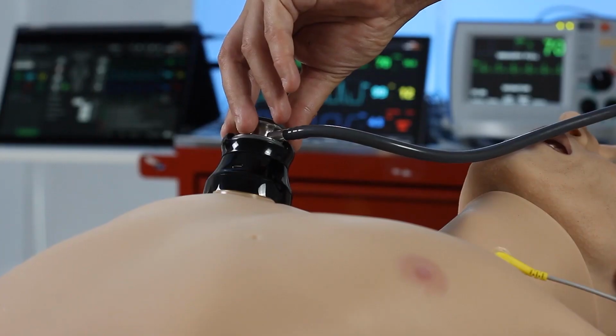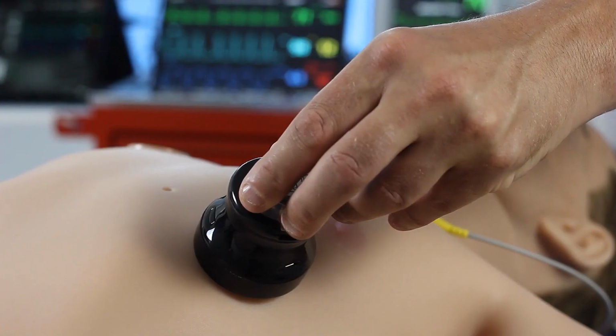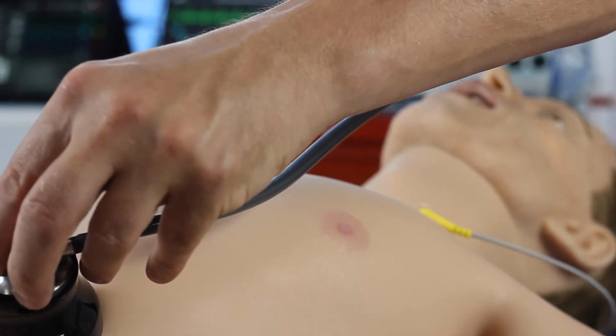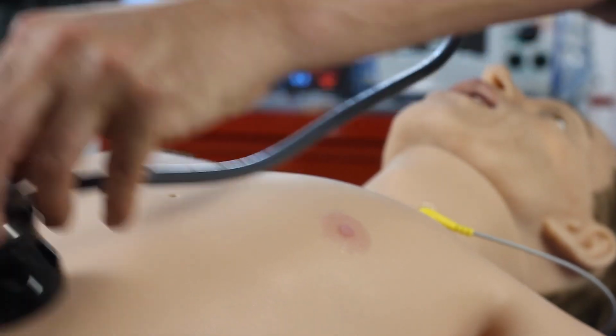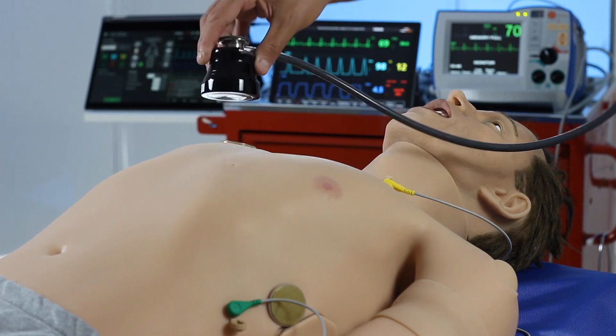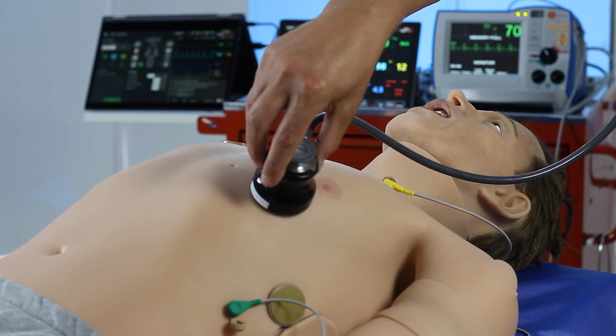Leonardo has many auscultation points across his chest for both respiratory, cardiac and bowel sounds. 5 anterior respiratory sounds, 5 for cardiac and 4 for bowel, as well as 6 posterior sounds for respiratory. The use of the smart scope enables the learner to really focus in on the auscultation sounds they're expected to hear. There is no background noise, and this will enhance the learner experience.